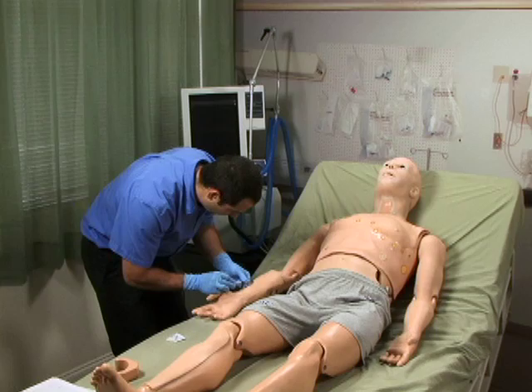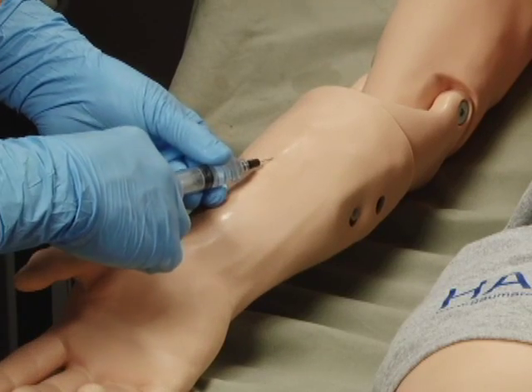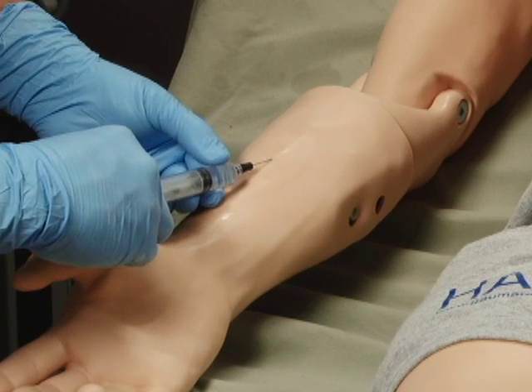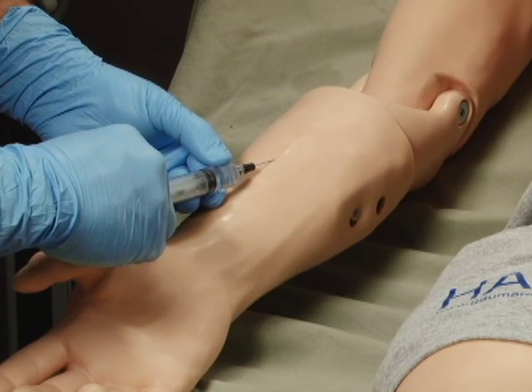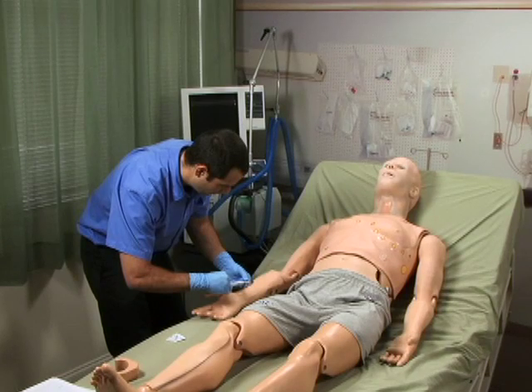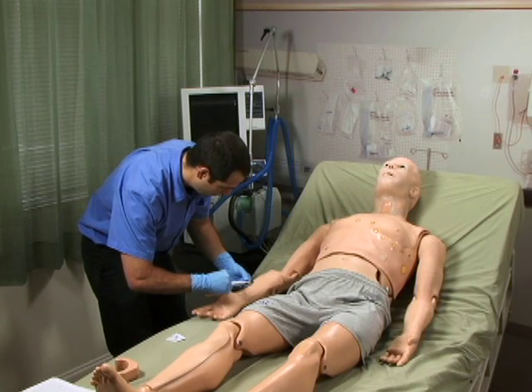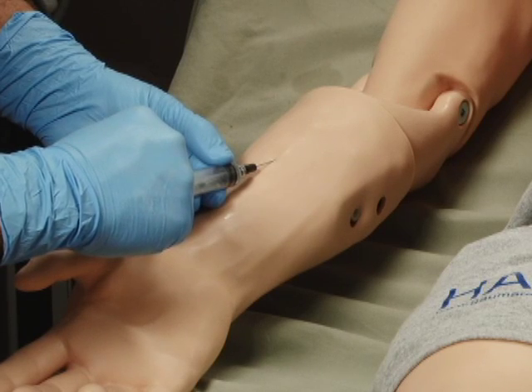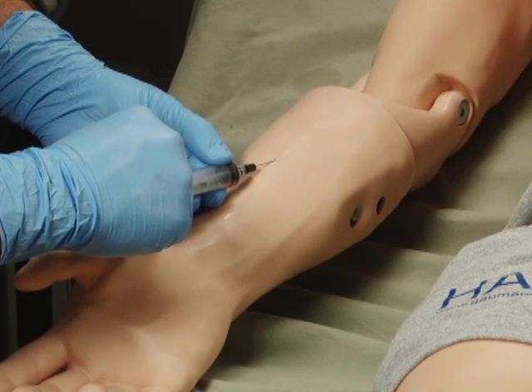The drug recognition feature can be used with either IV push or IV infusion. If the provider selects the IV push method, it is important to note that the system is accurate up to a volume of 50 milliliters. If more volume is required, the drainage hose must be connected to the black port to maintain accuracy. When using the system for IV infusion, Gaumard strongly recommends that the drainage hose be connected.